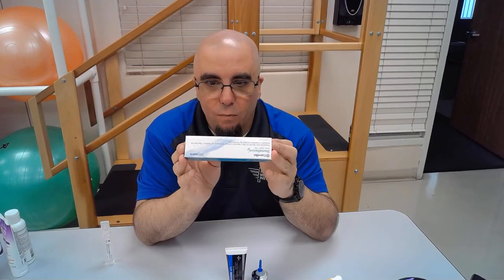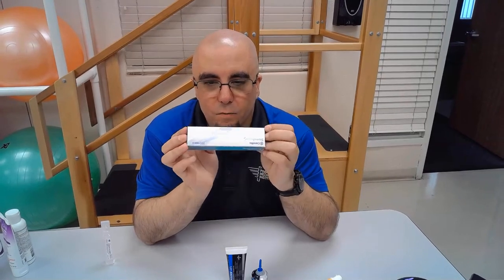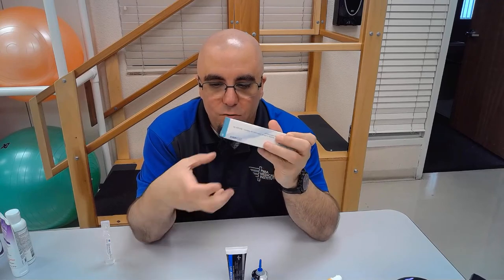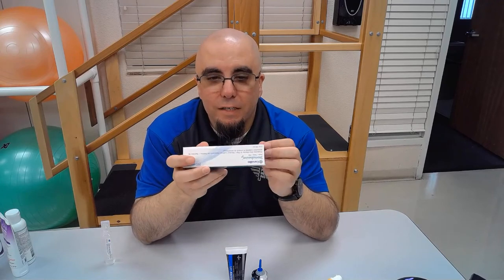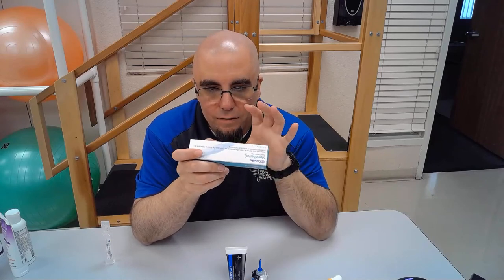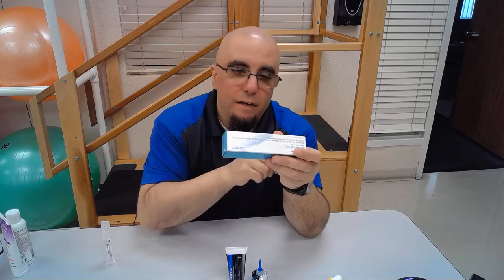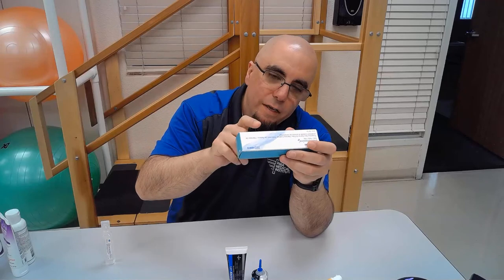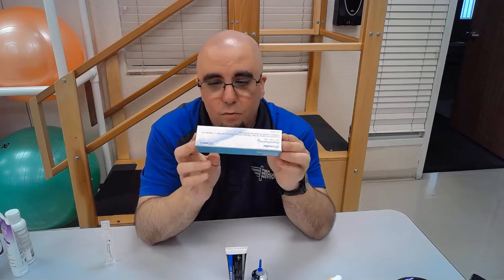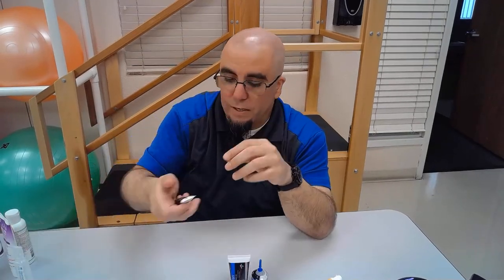There's also collagen hydrogel and stoma adhesive. Stoma adhesive is used around the peri-area where a patient has a colostomy or ostomy bag — it fills the cracks around the wound opening where the bag comes out. That area often becomes cracked and dry, which prevents the bag from sealing properly. This adhesive creates a nice smooth seal over the stoma.